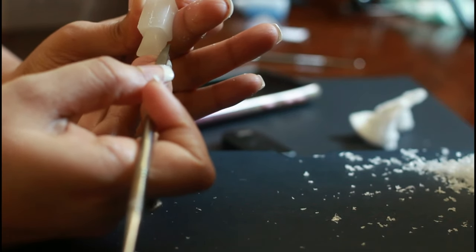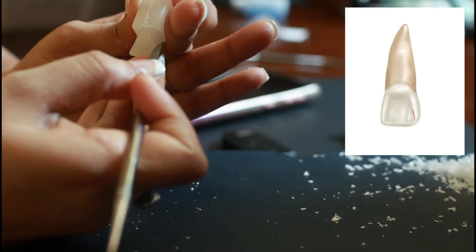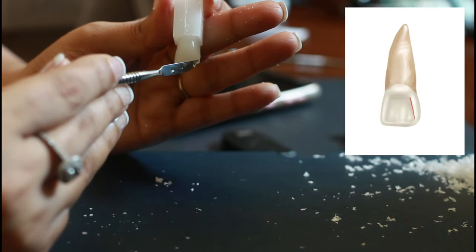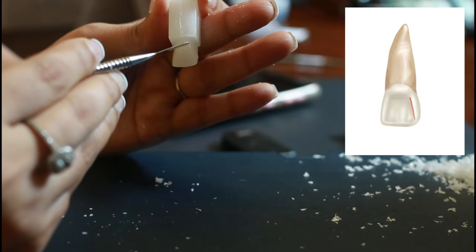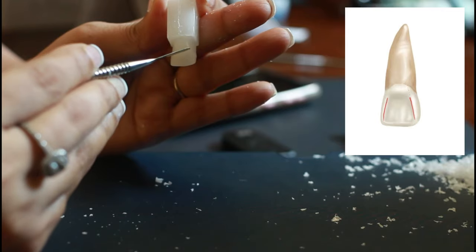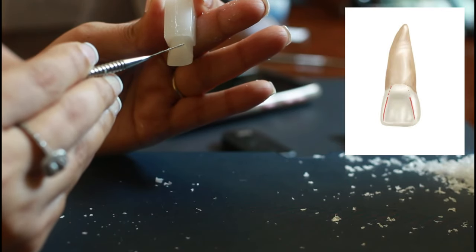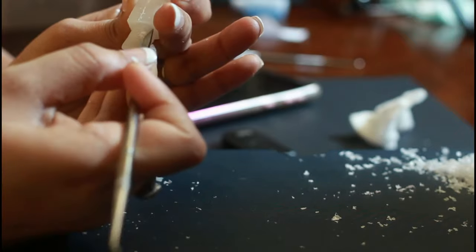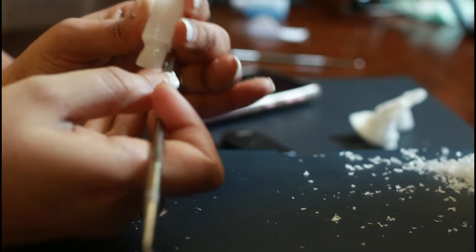I will further taper it towards the center of the palatal surface, but do not go beyond the end of the imaginary line that could be created if the fossa boundary lines are extended to the neck of the crown. Refer to the picture for better clarification here.